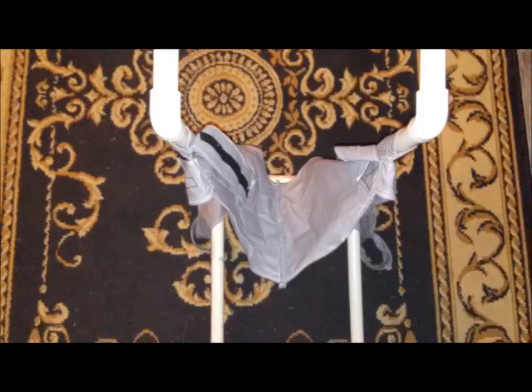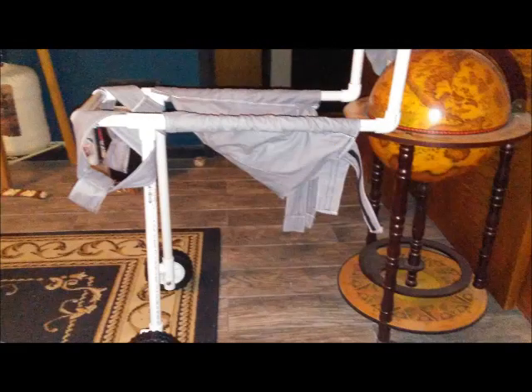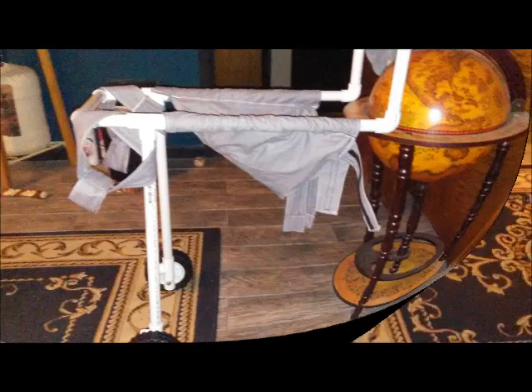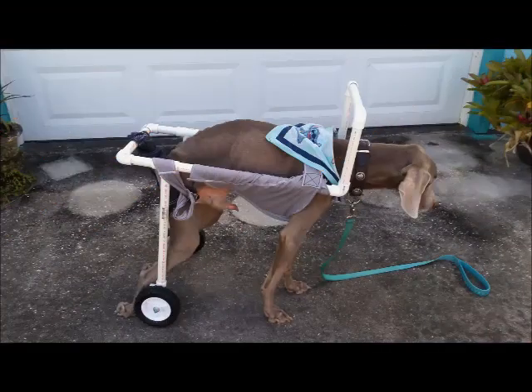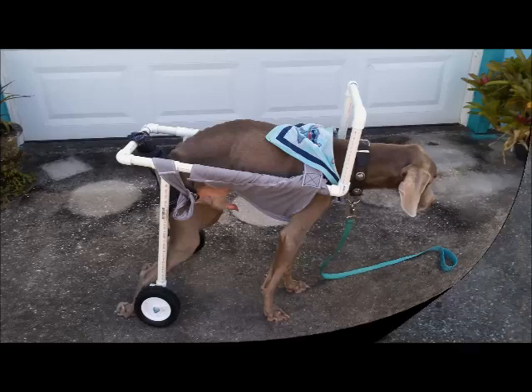There's the velcro — you can see how well it'll actually hold in place. It actually worked quite well and stayed on the dog. Even my vet was impressed with how this wheelchair worked. Keep in mind you're going to have to make all kinds of alterations as you make this, because your dog will be a little bit different from the original cuts and you'll have to make sure that it fits perfectly for your specific dog.